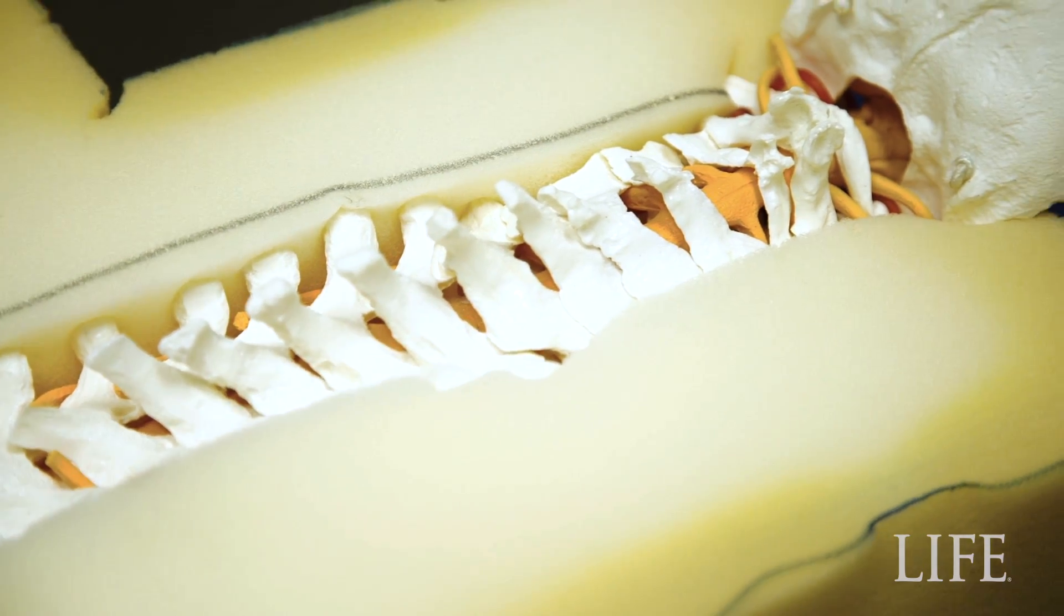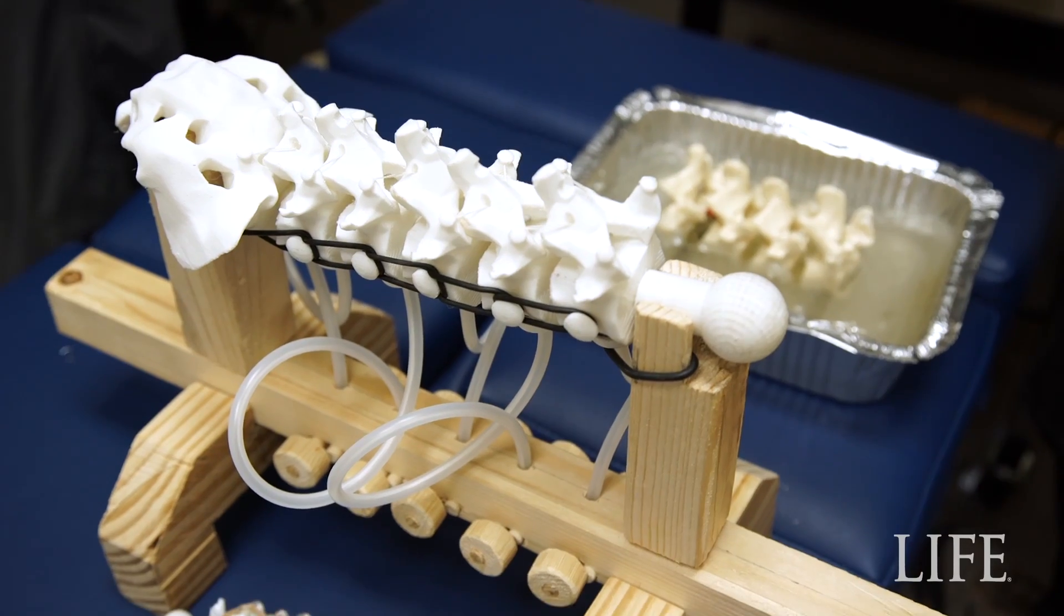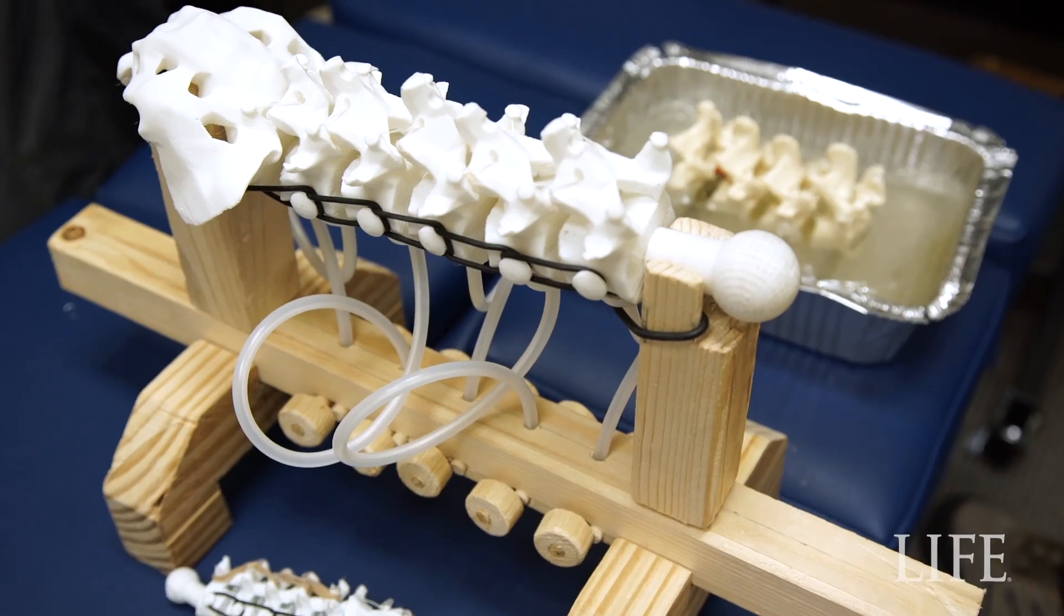A major purpose of having the adjusting mannequin is definitely education. We can give students a specific target and measure all those things to see how close they actually get, as opposed to a faculty member looking at them and making a subjective judgment.